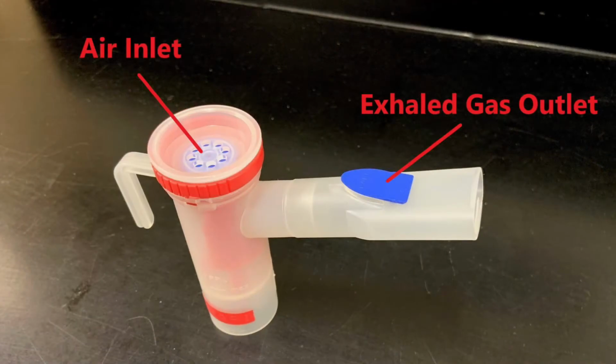This is a breath-enhanced small volume nebulizer. Source gas flows into the bottom of the device, producing an aerosol. The patient inspires through the air inlet valve at the top of the device. This increases aerosol production without any aerosol being wasted. When the patient exhales, the gas leaves through the exhaled gas outlet by the mouthpiece.